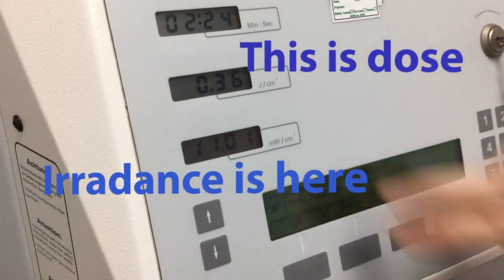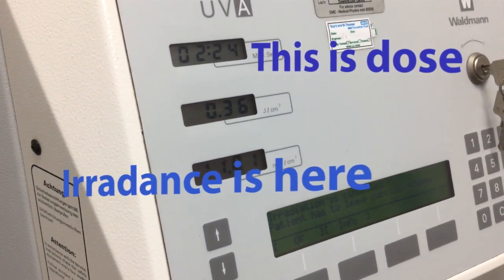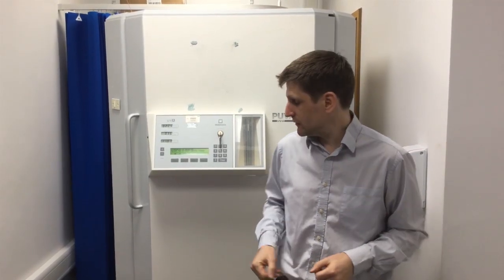We have the irradiance value here that the cabin has measured. Another thing to point out with quality assurance is measuring uniformity within the cabin, because we want to make sure the patient is receiving a uniform irradiance regardless of which side they're on. The onboard dosimeters are just looking at the front or just the back of the cabin.